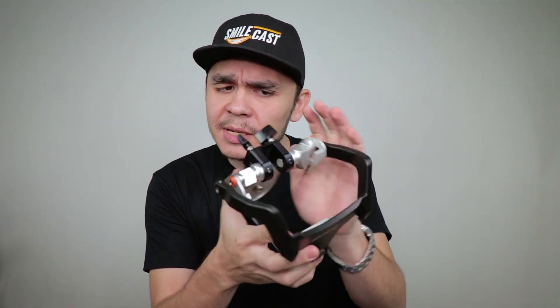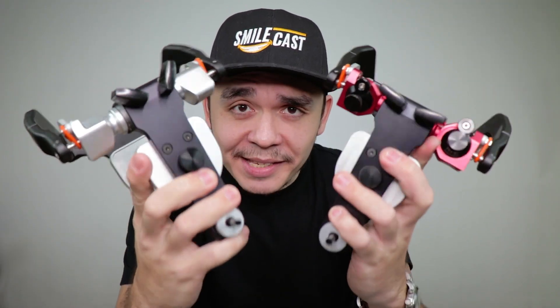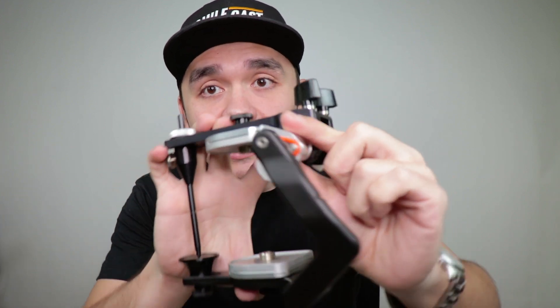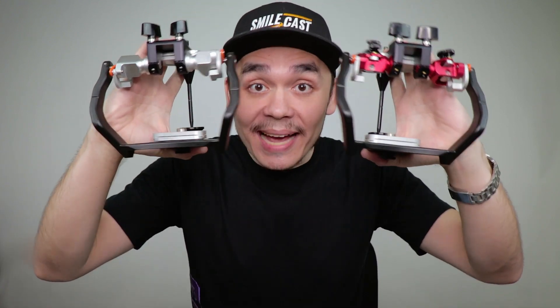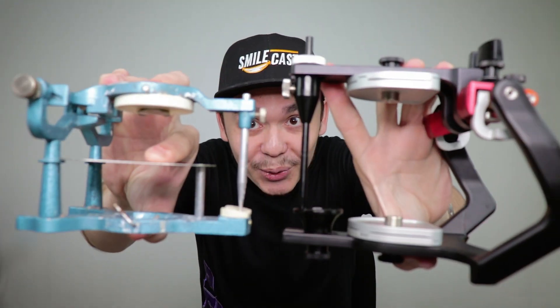Now let's take a look at the 400 series. It's quite similar to the 600 — you get the same hard case, same quality build and all those nifty features, with the exception of the Bennett adjuster that on this particular model is fixed at 15 degrees. Both are convenient to work on that 30 degree stand. Both have that widened rear axis that makes it easy to work with on the lingual part, and just looking at them against the previous model, they are huge.